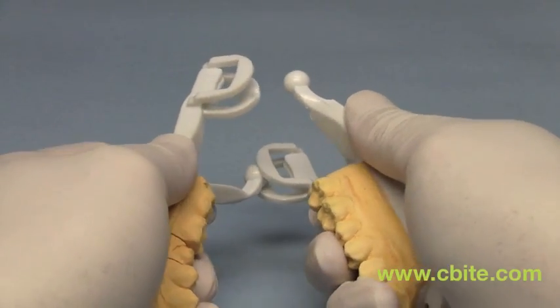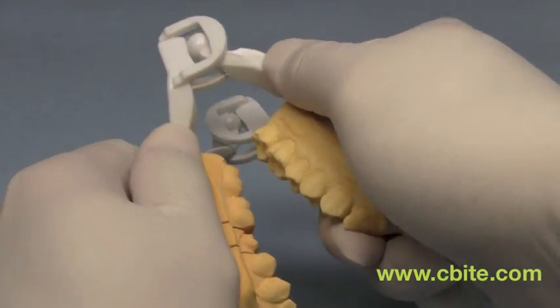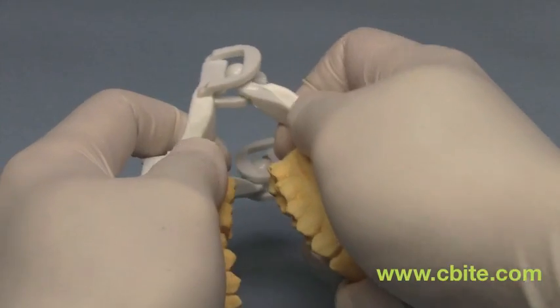Snap together using the ball guides, you should now feel smooth lateral and protrusive movements.